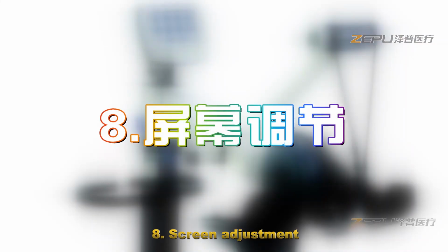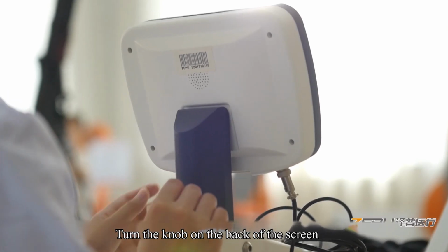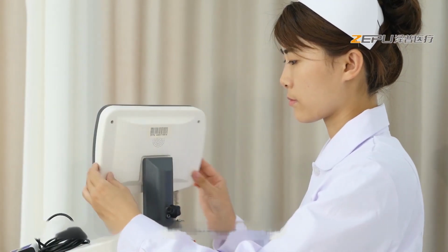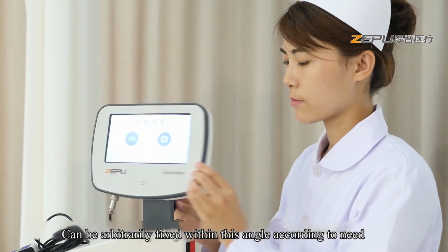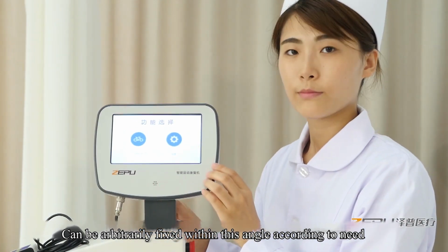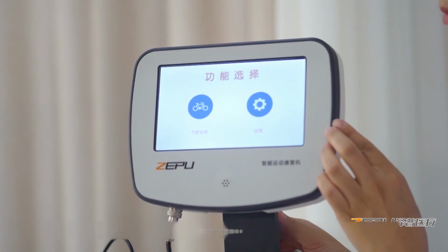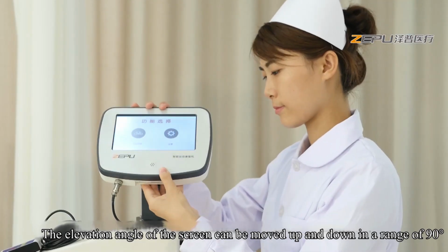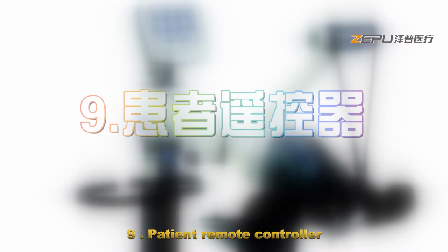Eight, screen adjustment. Turn the knob at the back of the screen. The screen can be rotated by 180 degrees and can be arbitrarily fixed within this angle according to need. Fix the knob. The elevation angle of the screen can be moved up and down in a range of 90 degrees and fixed, according to the light changes and operation convenience.